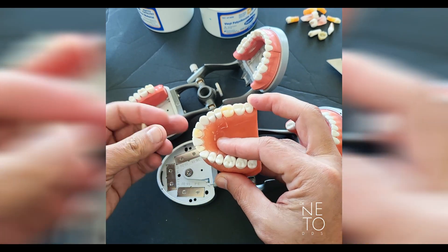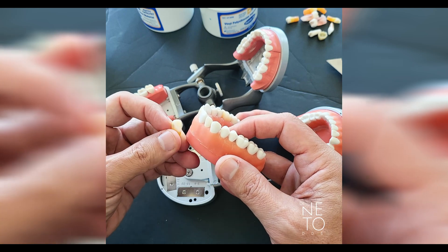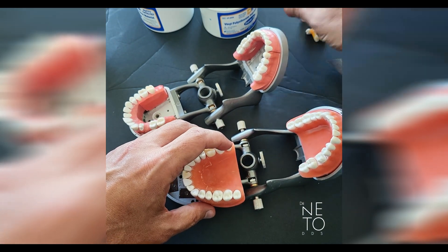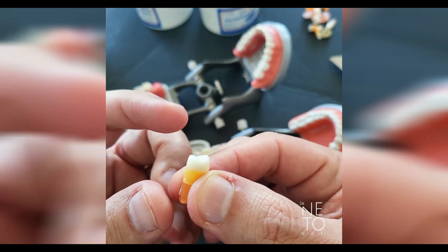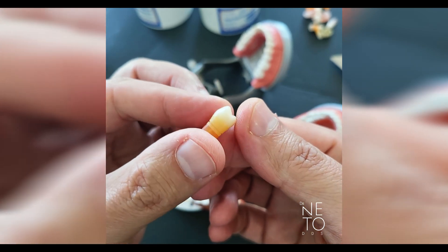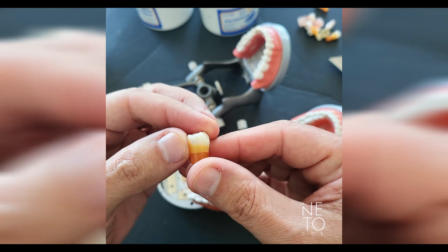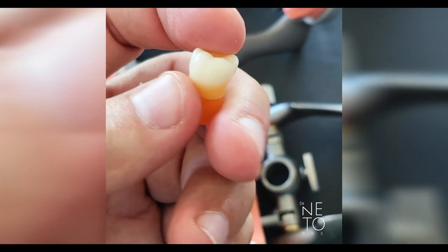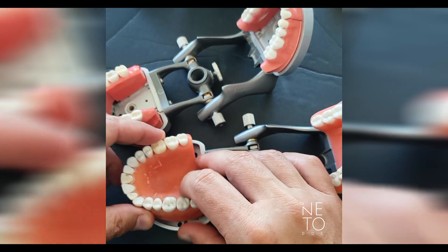You unscrew and place, for example, number nine — the carious tooth right here. On this one the caries is on distal, on another it's on mesial, and it varies. They will tell you at the moment of the exam. You also have number 29, which has caries on distal as you can see by this shadow. And number 30 — sometimes the decay is on distal, sometimes the cavity is on mesial.